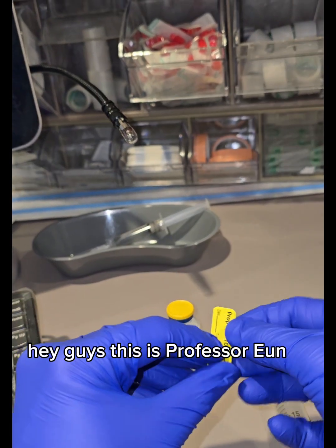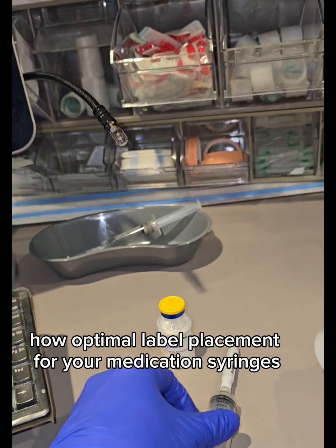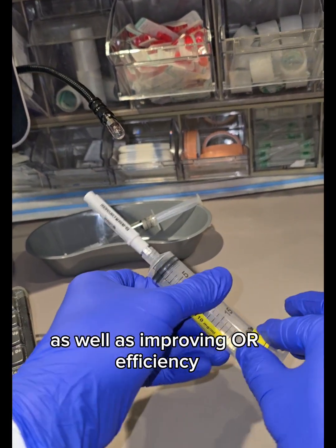Hey guys, this is Professor Un, and in this video, I'm going to show you how optimal label placement for your medication syringes can make a big difference in reducing risk of medication error, as well as improving OR efficiency.